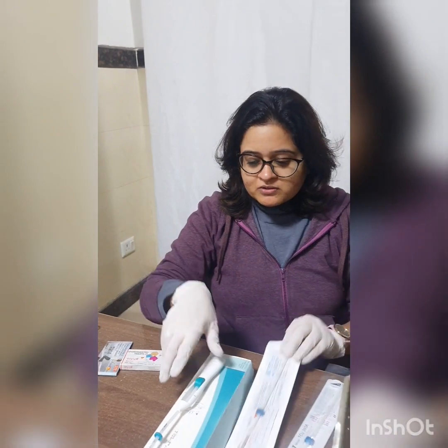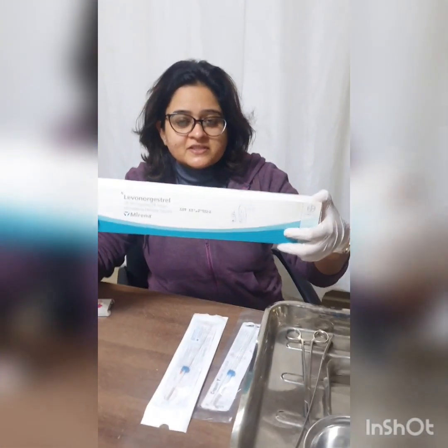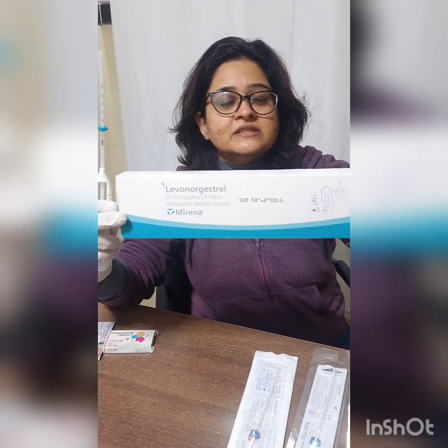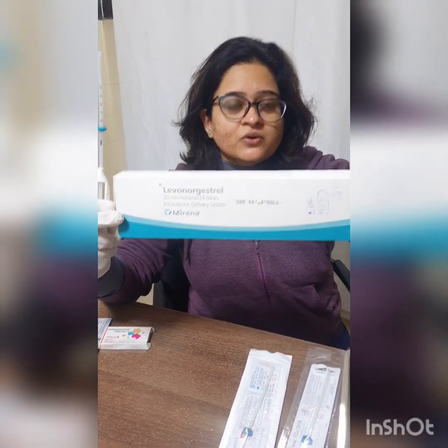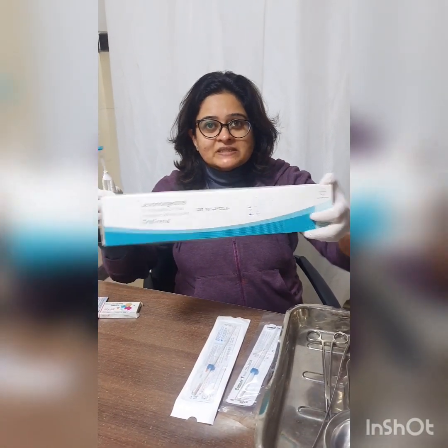We also have the third generation of intrauterine devices. You can see here — this is the LNG, or Levonorgestrel-containing intrauterine device, also very commonly known by the name Mirena.